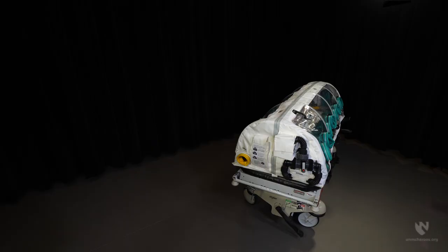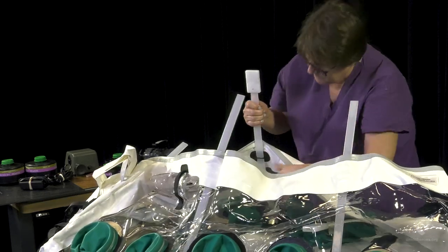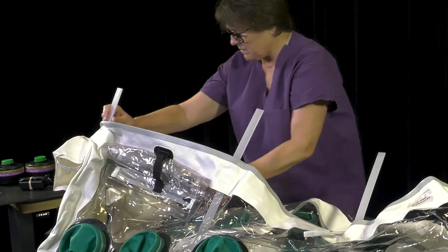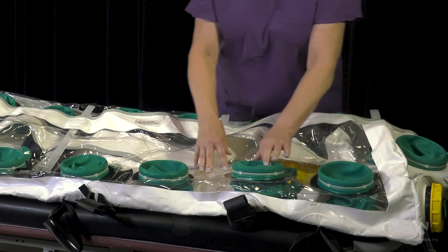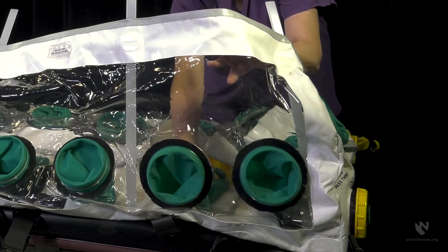Inspecting the interior and exterior of the ChemBio isopod before use is an important element in mitigating the risk of exposure. Consider developing a checklist to be sure nothing is overlooked during inspection. Check that all rib and spine components are present and functioning correctly. Inspect each glove port on the interior and exterior of the ChemBio isopod to verify they are intact and the nylon tie is secure.